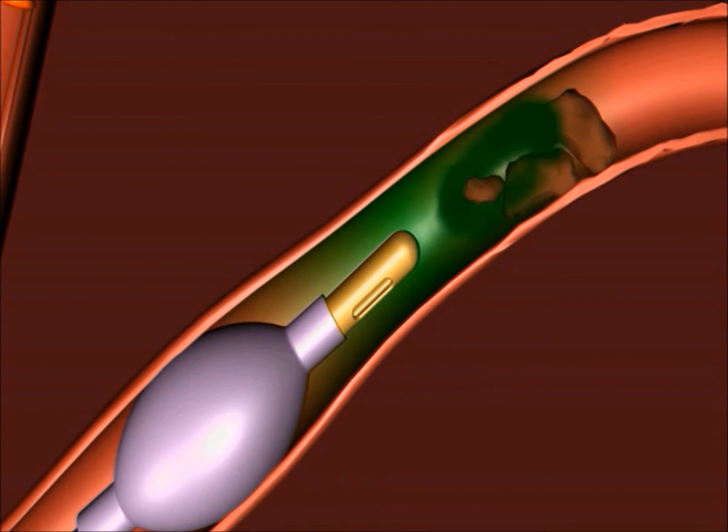In turn, the delivery of the treatment breaks the clot, allowing the clot to be removed.